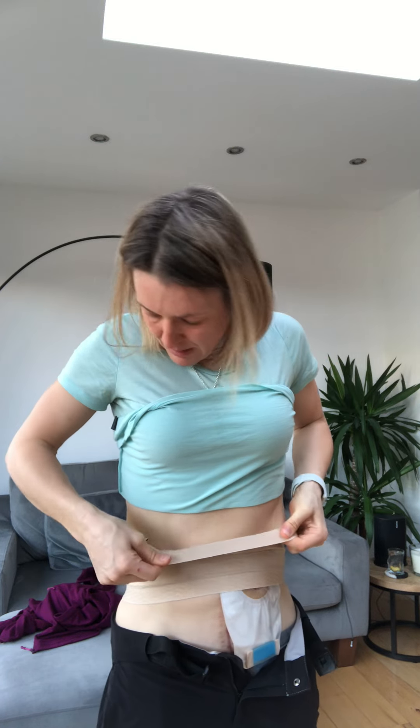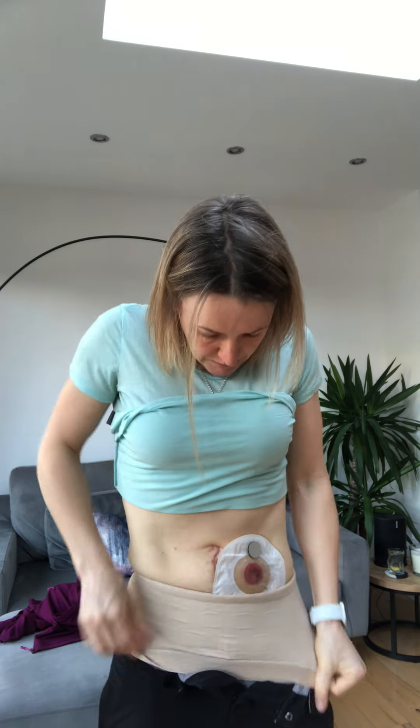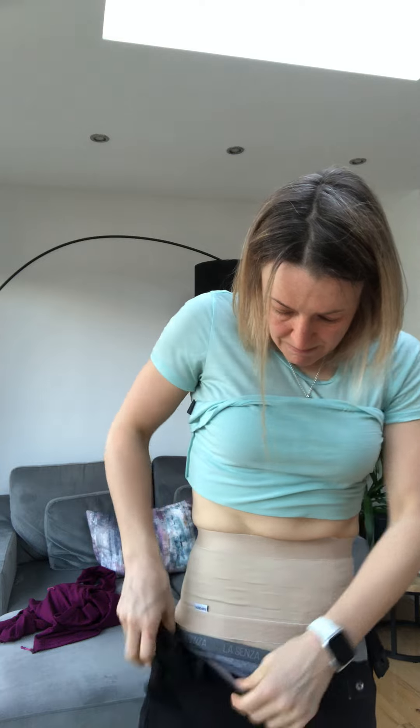So at the moment it's on inside out. You put it on inside out, pull it up to its top position here, and then you wrap it down. I misjudged it a wee bit. Basically, that's it - it runs across the stoma bag and it just sucks everything in and gives it a little bit more support.